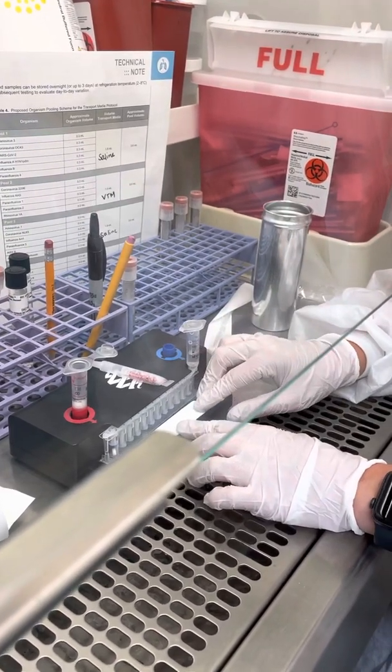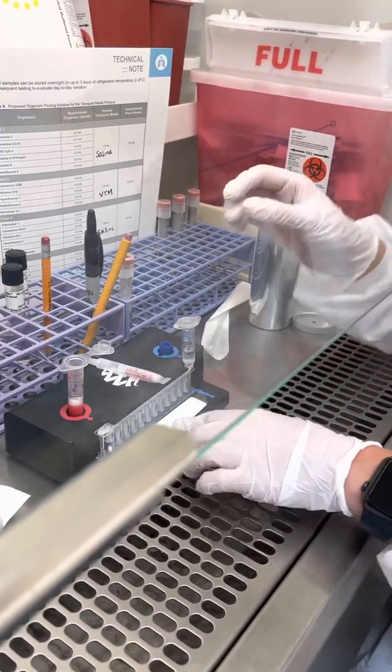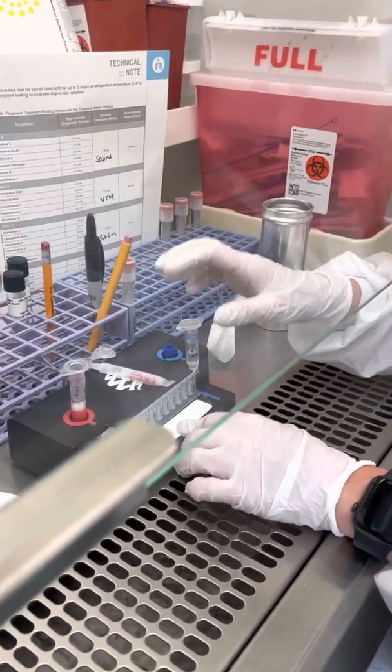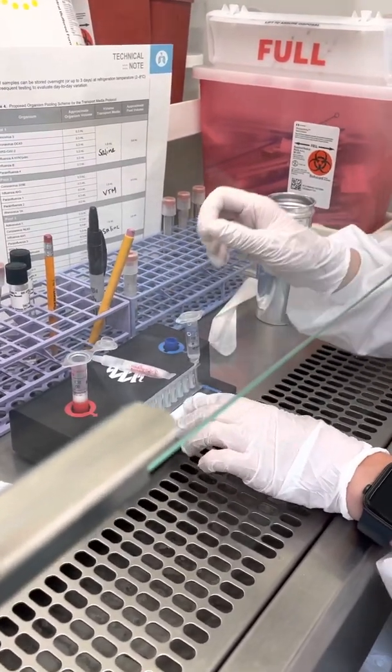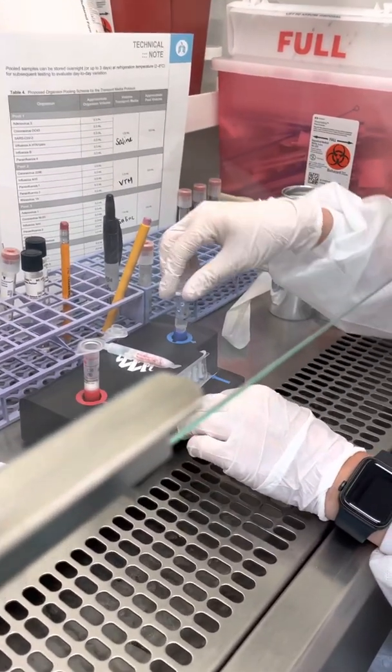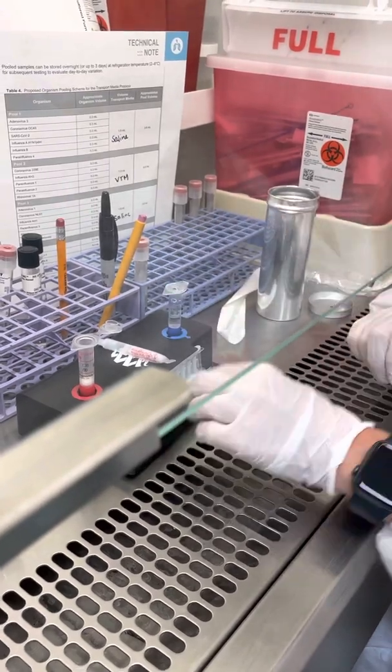So it will be like a pouch defect and I'll send you that information. Then once you've hydrated, pull your needle out, put it back.